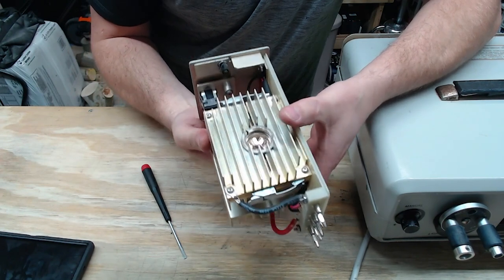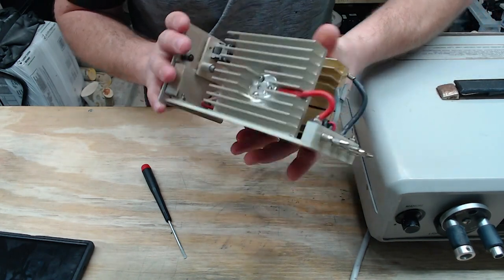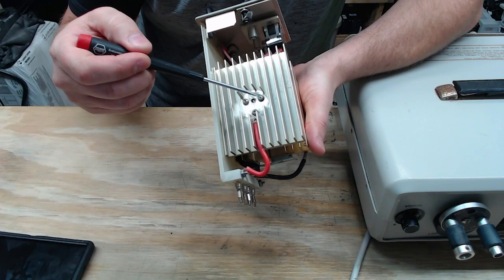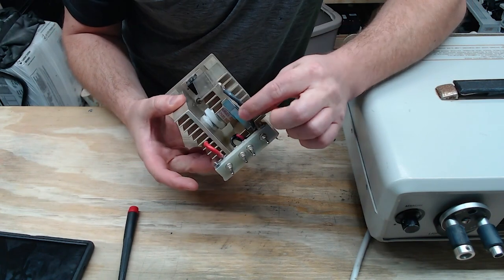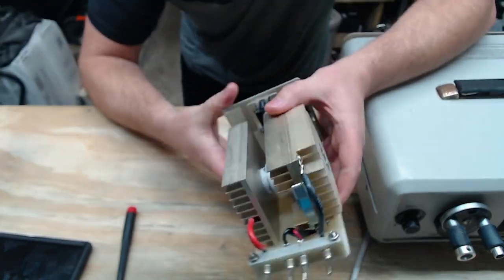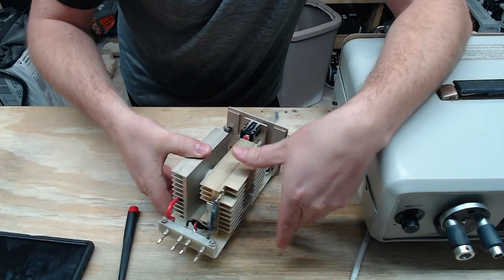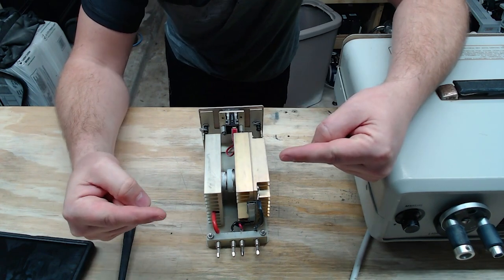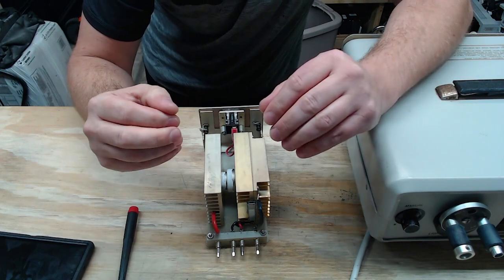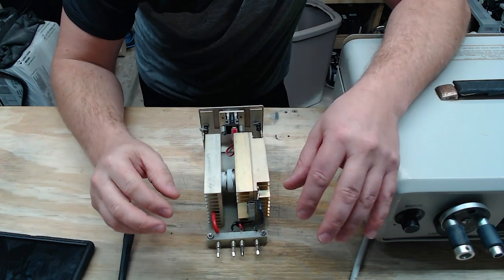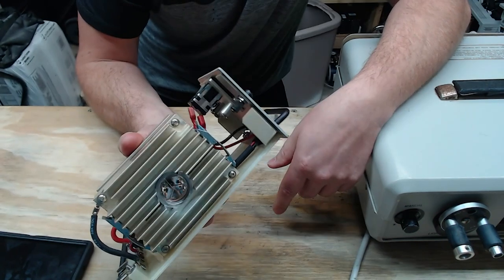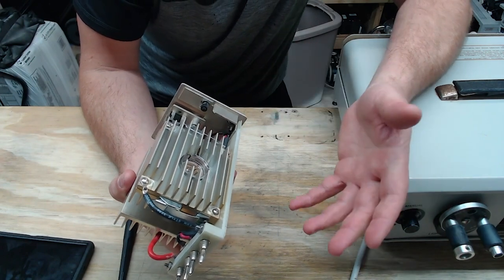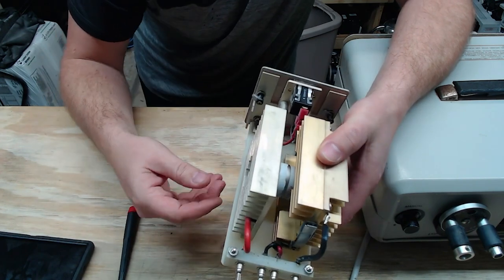Now, this particular bulb is being held in by tension with these clamps right here, but at the same time, on the very back of the bulb, you can see that we have a series of small Allen screws which screw directly into the back of the bulb. We have some silicone-type wiring because this bulb operates on high voltage to ignite the gap. So right inside that bulb, we have an anode and we have a cathode and the electrons flow from one to the other, but they need a high voltage arc to get that ignited. And once the gas is ignited, then it will convert over and it starts utilizing a low voltage, high amperage current to maintain the arc. So that's how Xenon works. It's a gas that is ignited with a high voltage arc and then once it's ignited, it kicks over to a low voltage, high amperage current to keep it going.